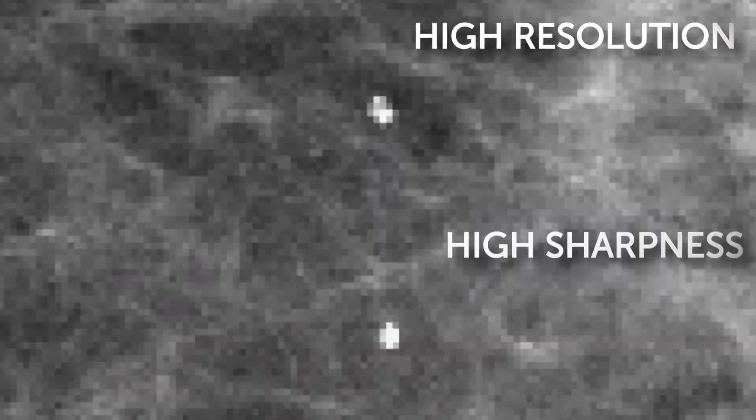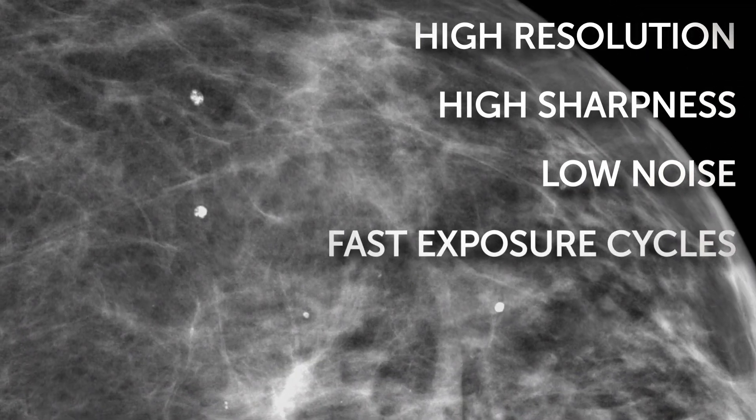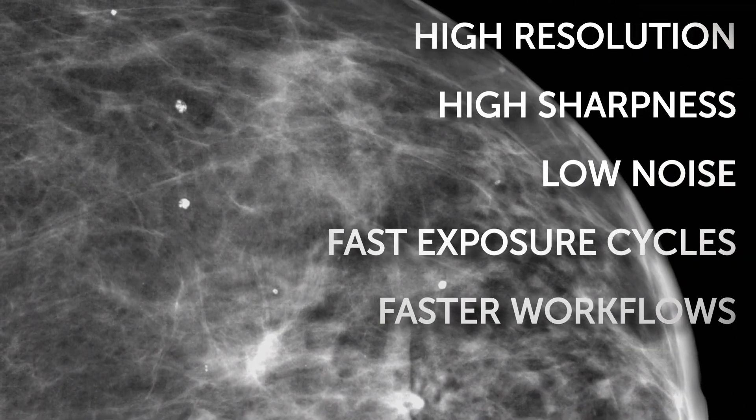With groundbreaking technology that results in high resolution, high sharpness, low noise, and impressively fast exposure cycles for increased patient throughput.